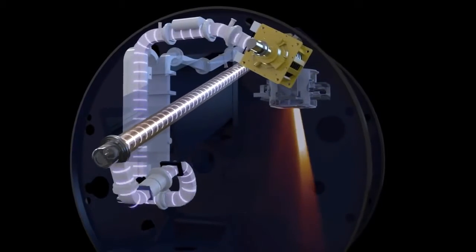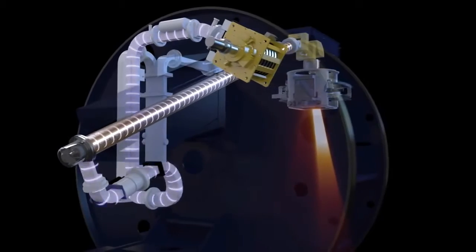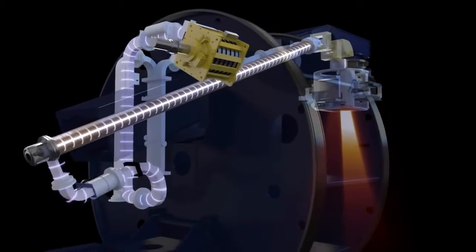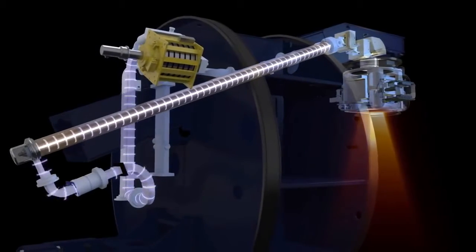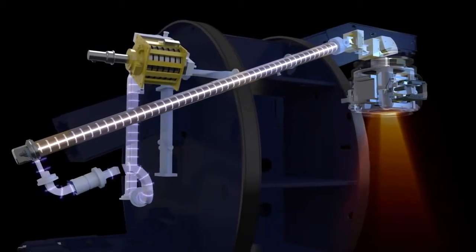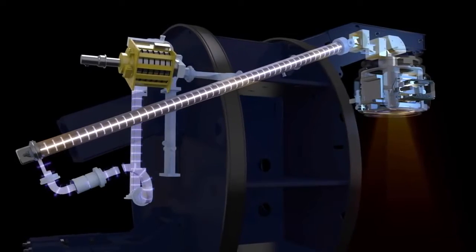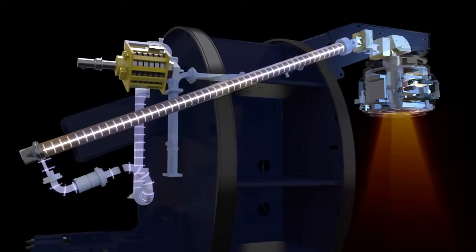The X-ray beam is created when the electrons hit and interact with a tungsten target at the opposite end. The magnetron controls the power and frequency of the radio frequency waves, which determine the energy of the X-rays produced.